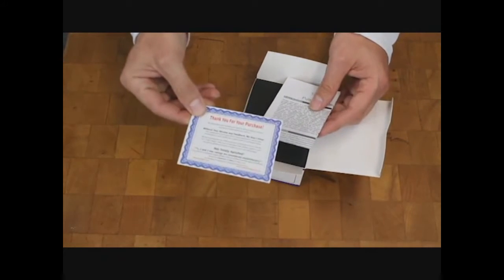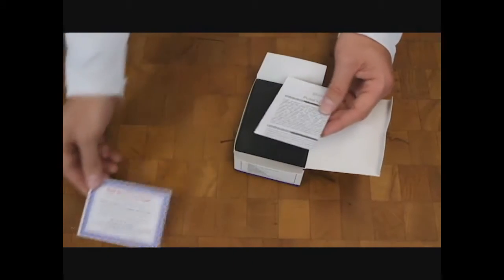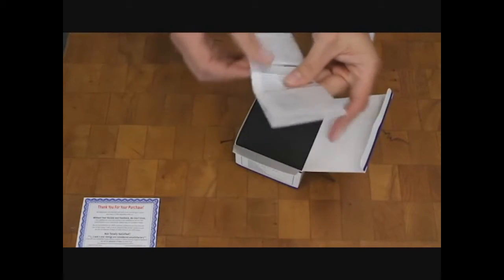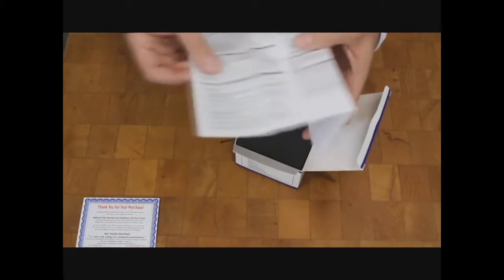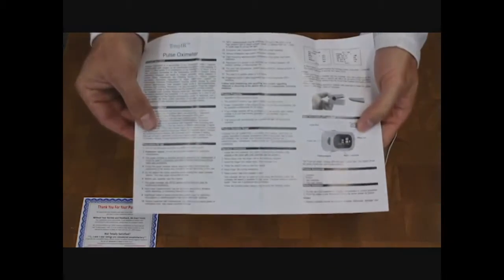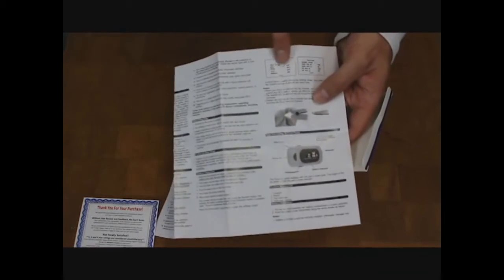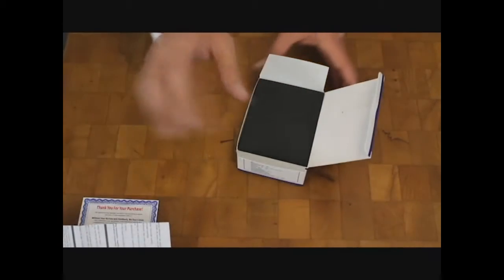It comes with a little thank you for your purchase card and talks about your registration. It also has a very nice, well-written instruction manual. It tells you all about it, shows you the different menus you're going to see, and walks you through battery installation as well as troubleshooting. It's actually a very nice, well-written guide.